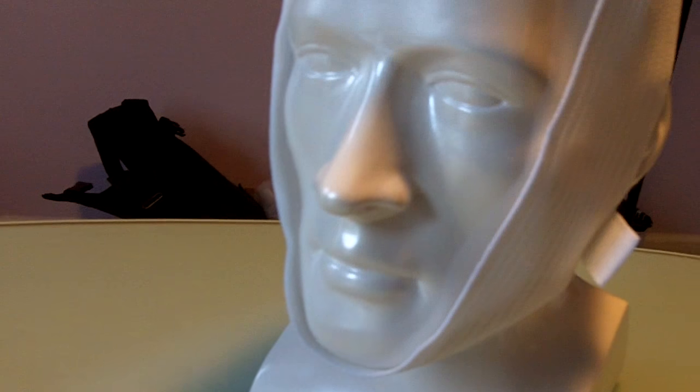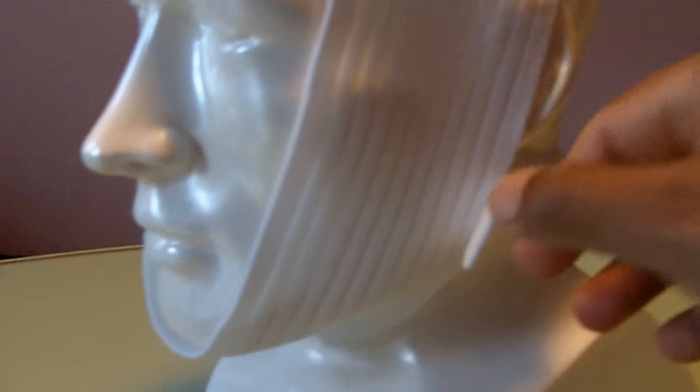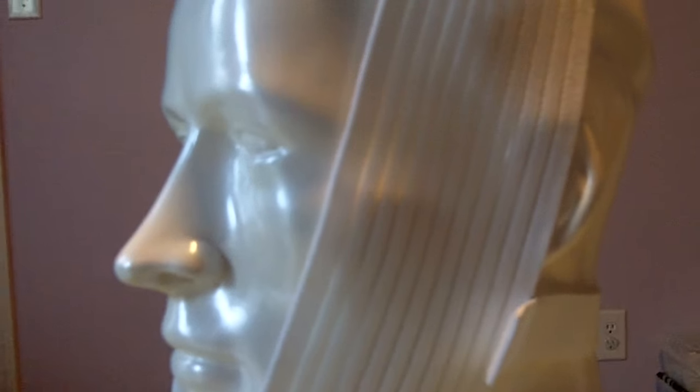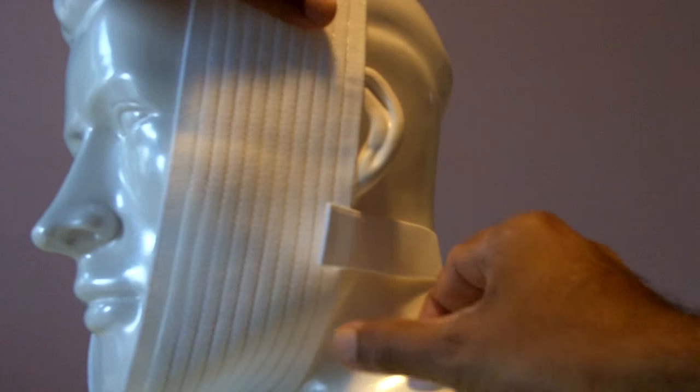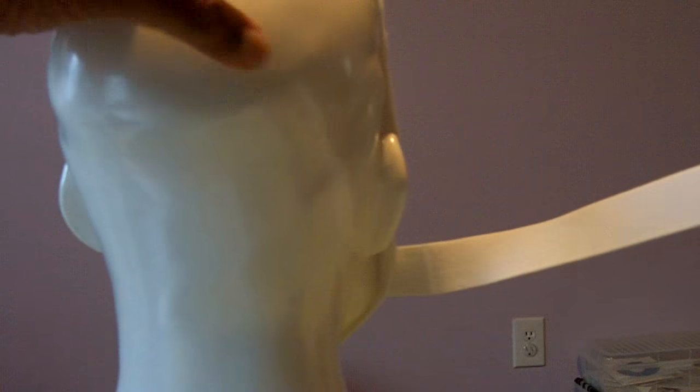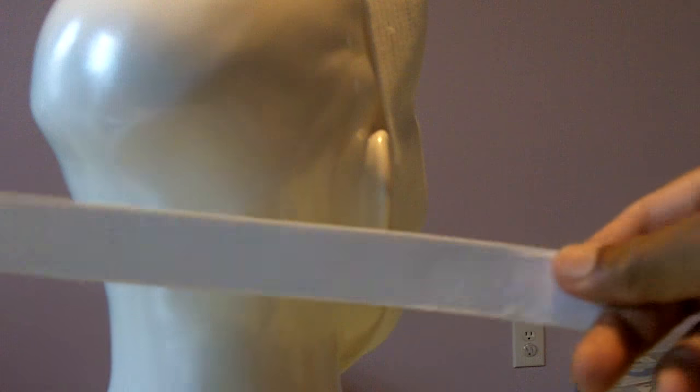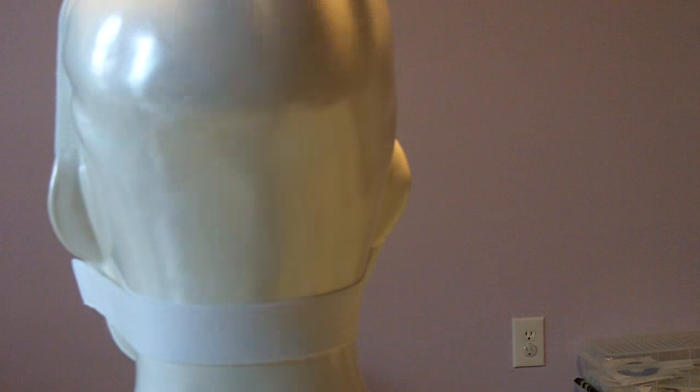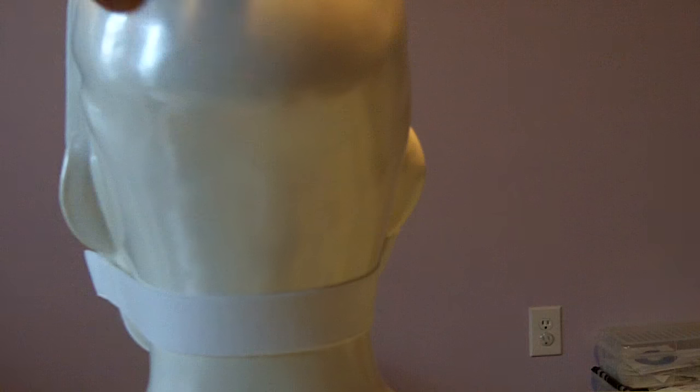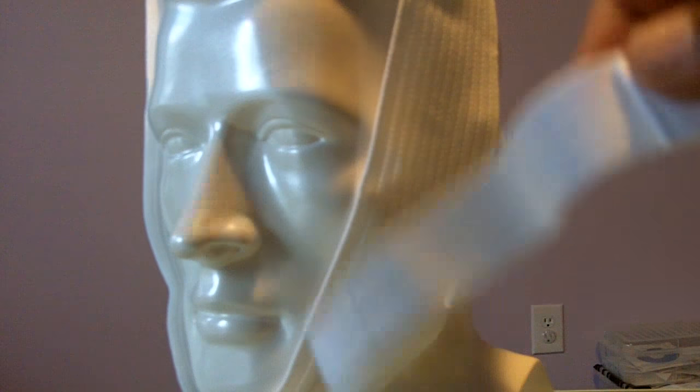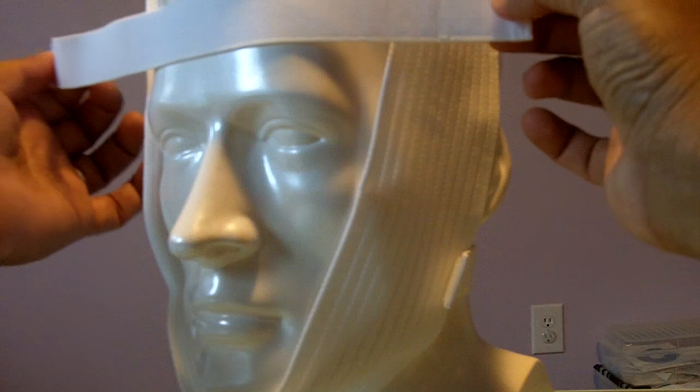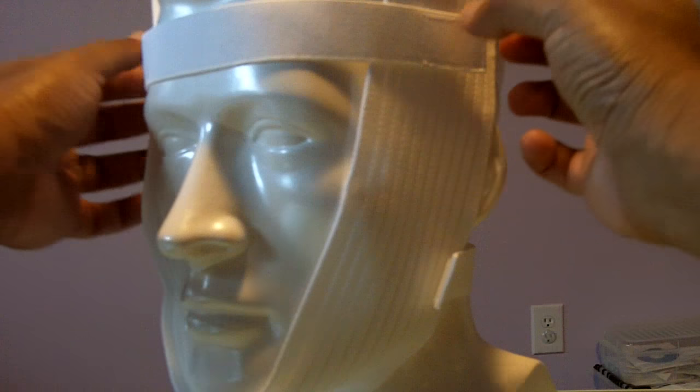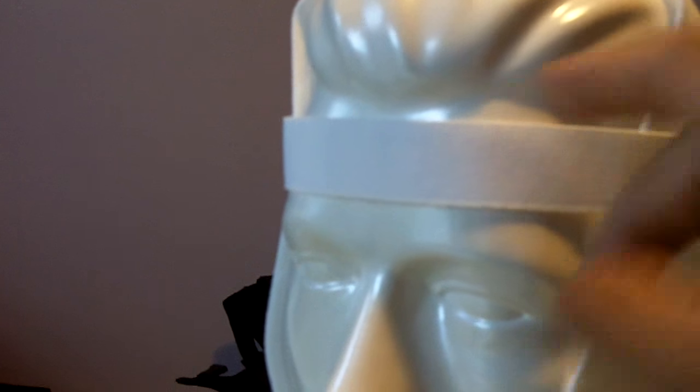Now, they also give you what they call anchoring straps. So along with that, you get one of this here. So you get a strap here just like that, that goes in the back of the head, back of the neck, so to speak, to anchor it. And then in the front. And let me put it in and then I'll show it to you. Right here.